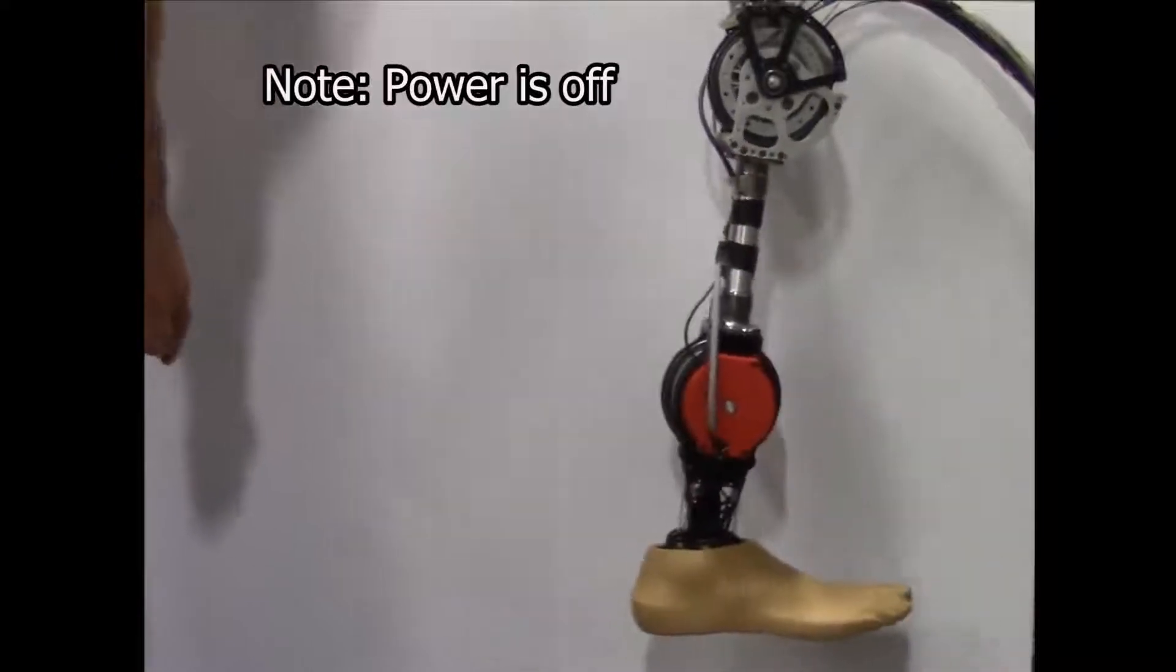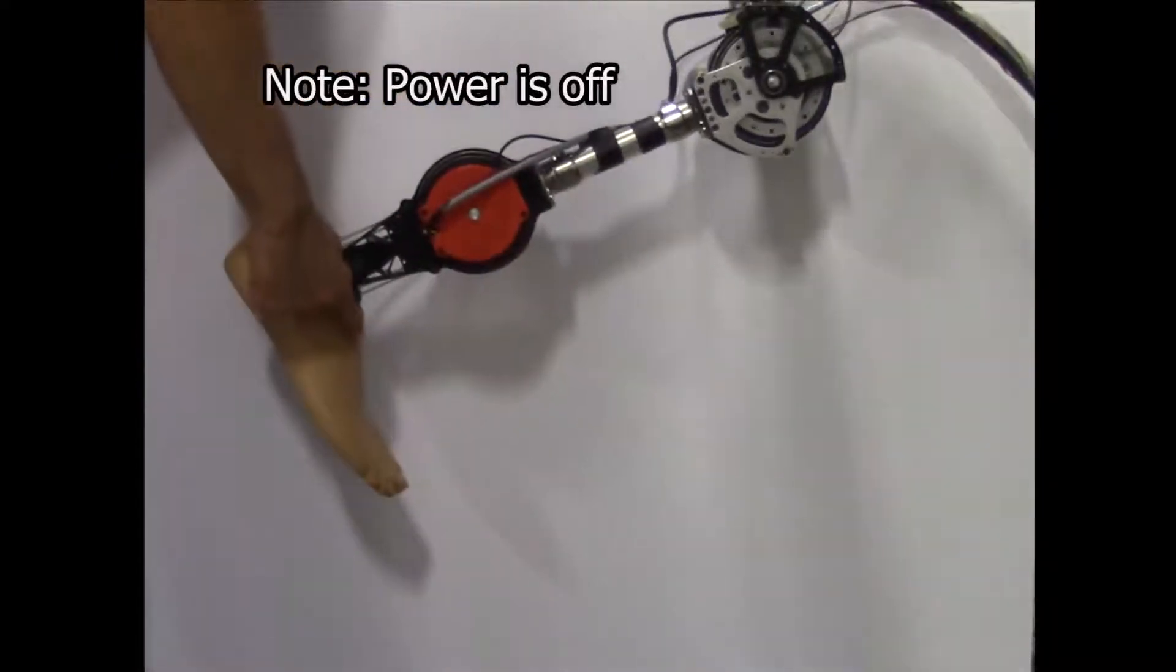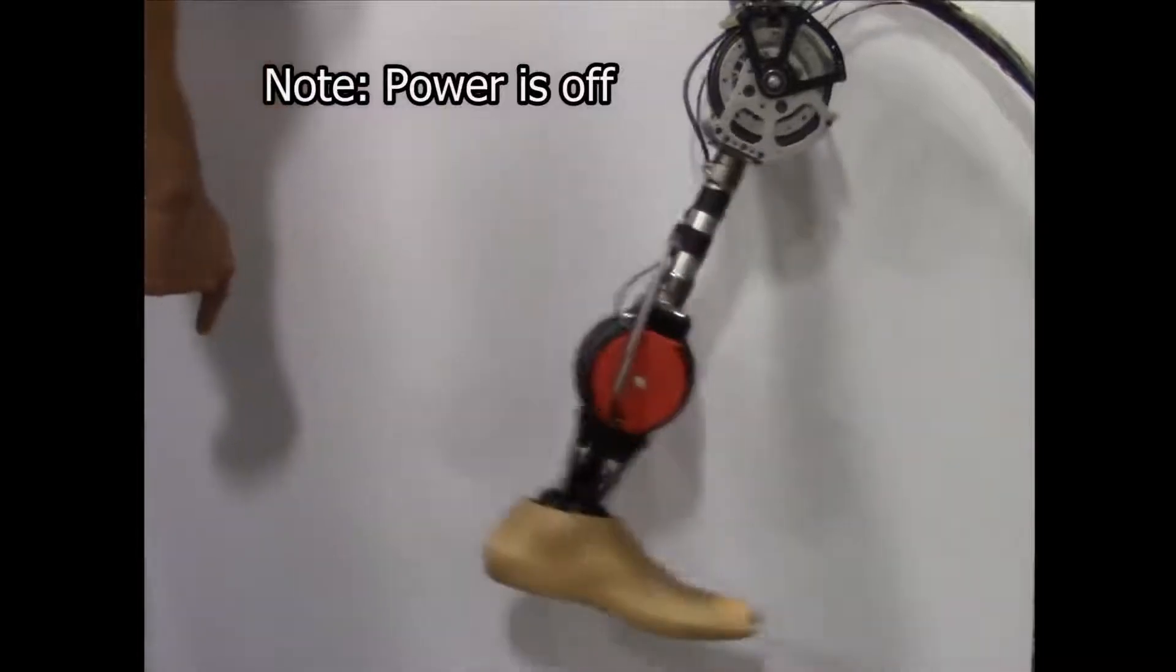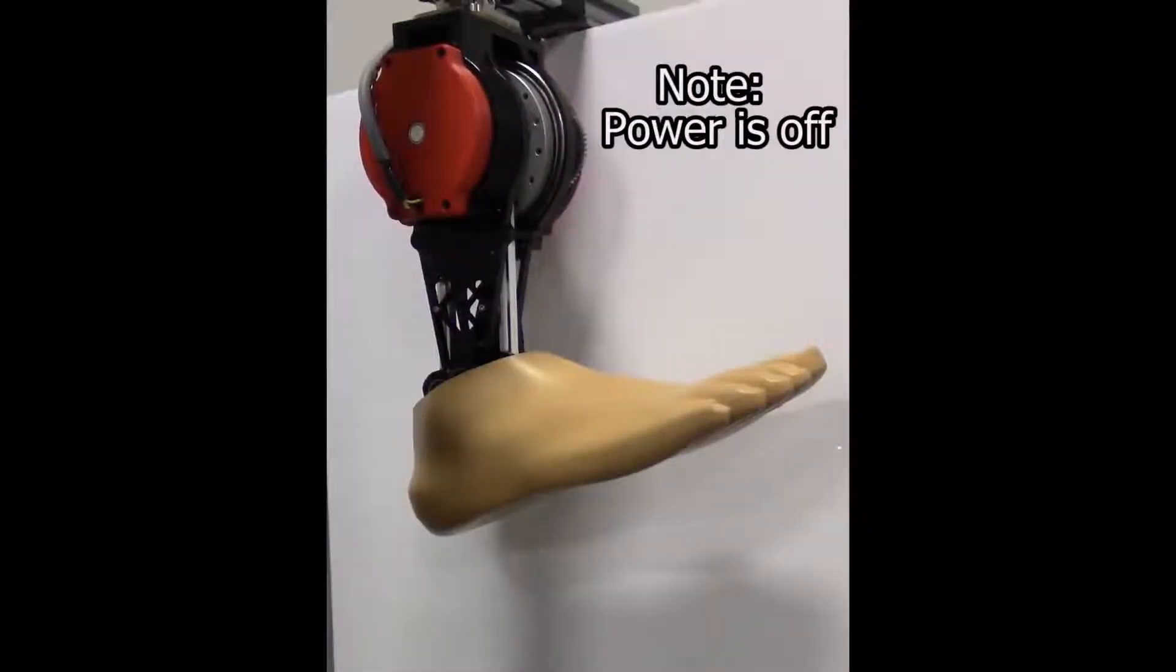Benchtop testing demonstrated that free-swinging knee motion is achievable, and that the actuator is able to be back-driven by low torques at approximately 3 Nm.